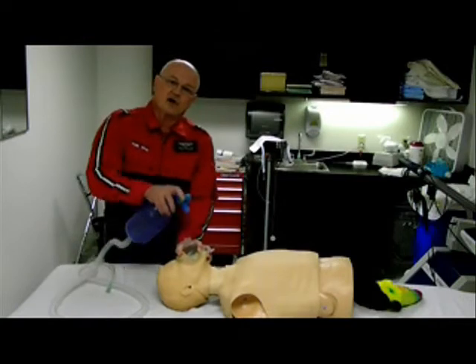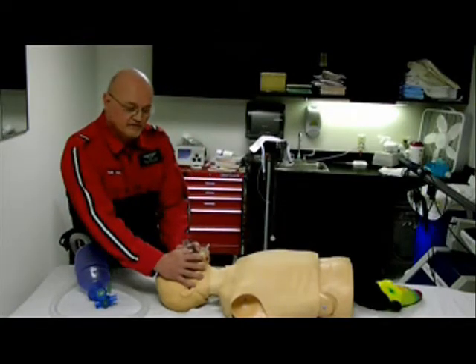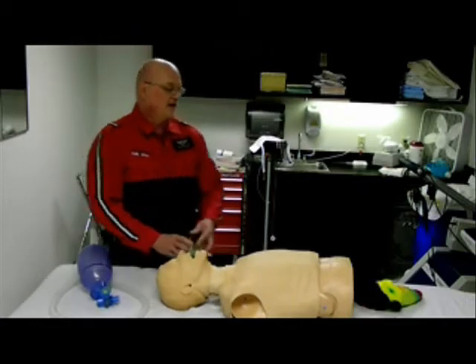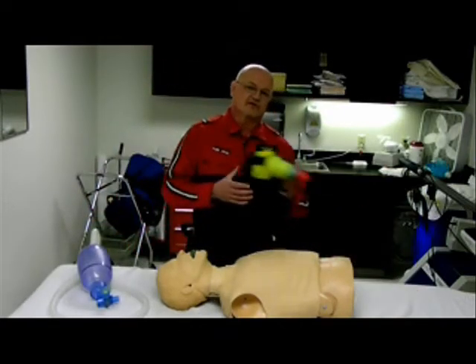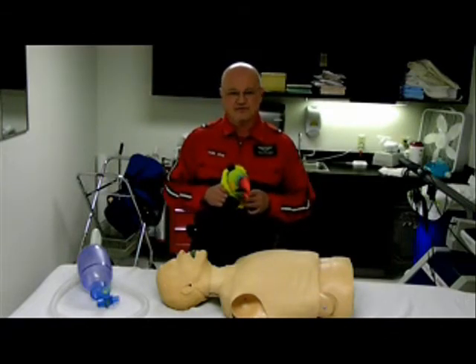Third, we want to use these three fingers to go underneath the jaw and pull up on the jaw by pushing down on the mask to form a seal. If you have small hands, like toucan, you can use both hands to form a seal. Toucan is just a little self-conscious about his small hands, because you know what they say about guys with tiny hands — small gloves.